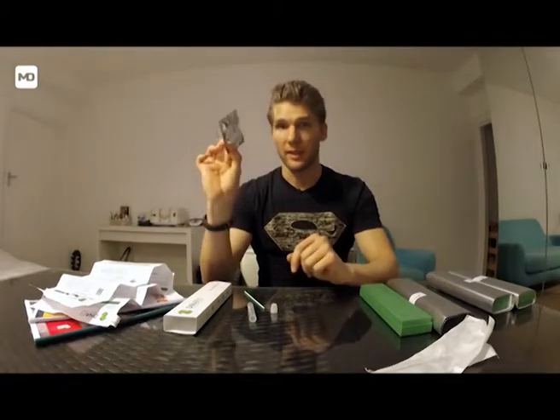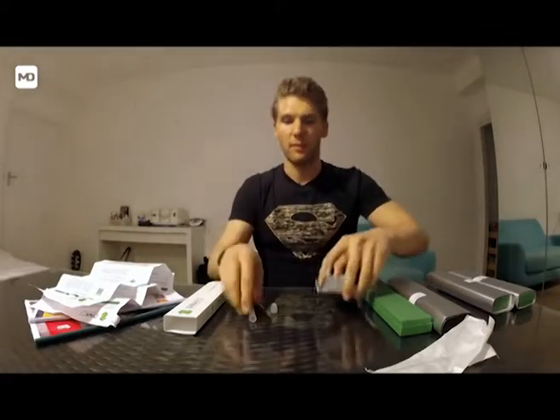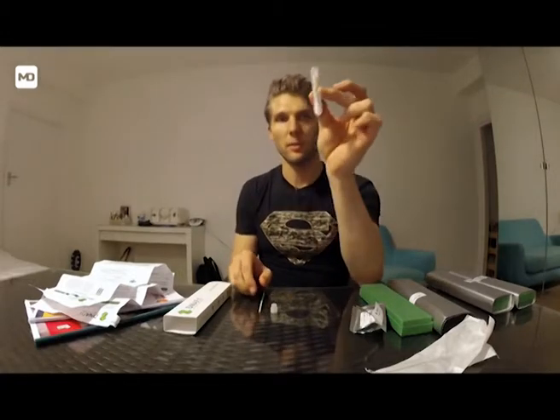Now we've got it in there. Because it might take a couple of days to reach the laboratory, we want to make sure it stays fresh — that's why we've got another little capsule to put inside. You open the capsule and, if possible, don't touch it with your hand. You use it here, put the capsule inside, and swap it in so it's on top.